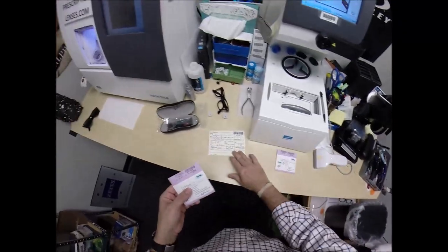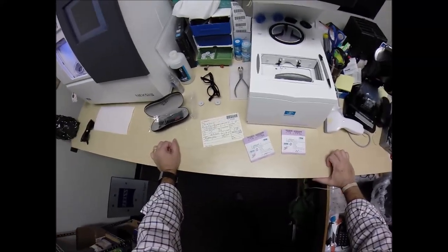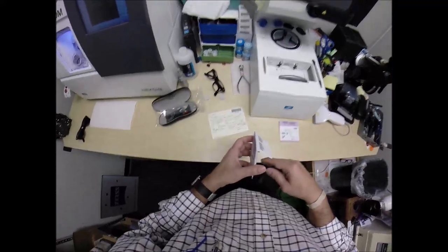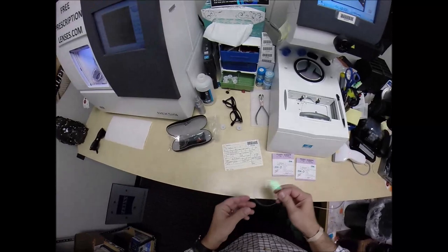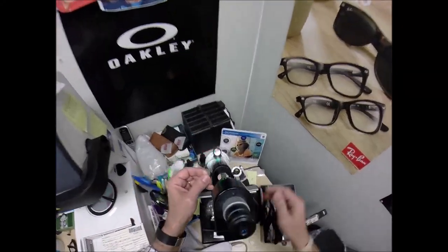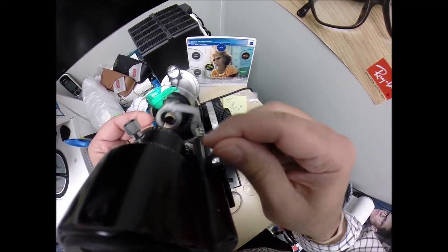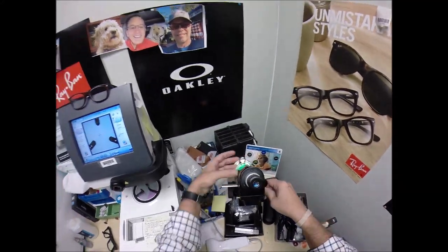I apologize if my voice doesn't sound right — I got the sniffles over the weekend. Minus one — let's put the power drum on minus one. Put the lens in there, rotate until the spherical component comes into view first, then check your astigmatism correction. That looks good — I'll explain all that a little bit later.